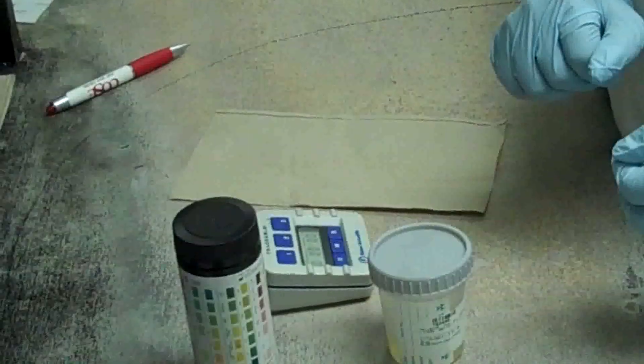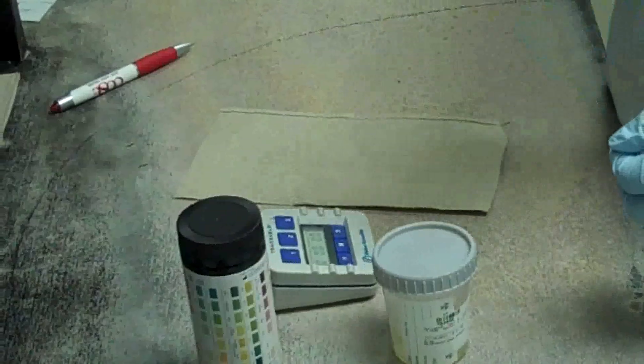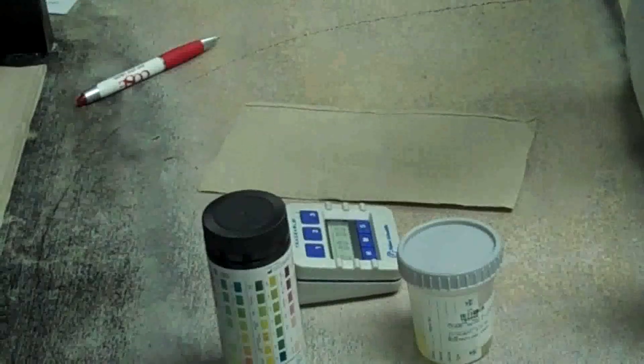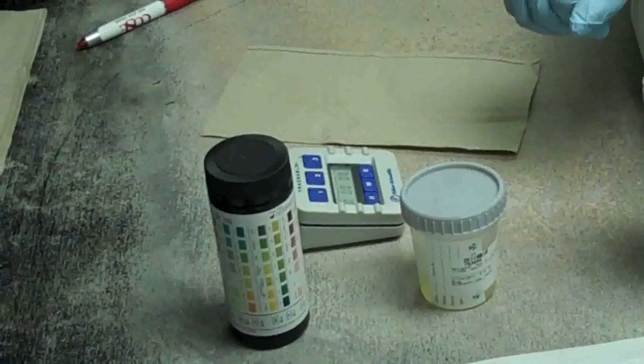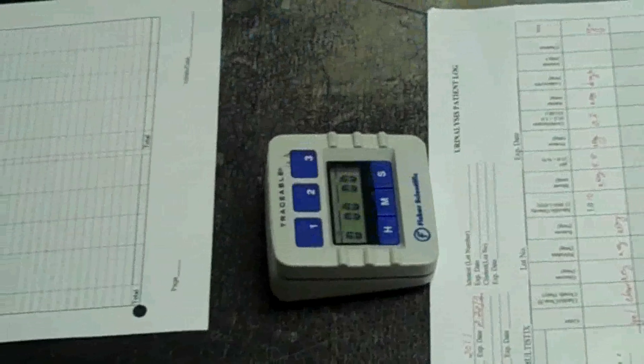The test areas are on the reagent strip, on the dipstick. Set timer. Today's test is a two minute test.